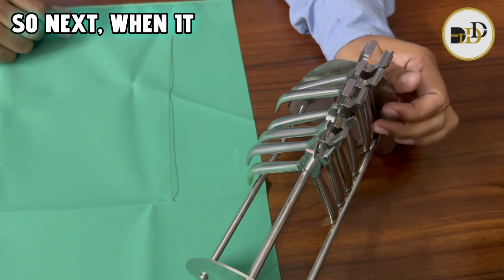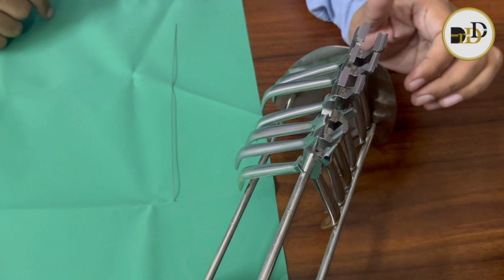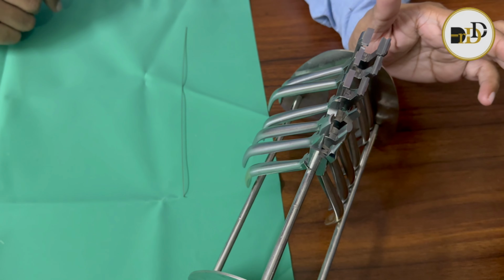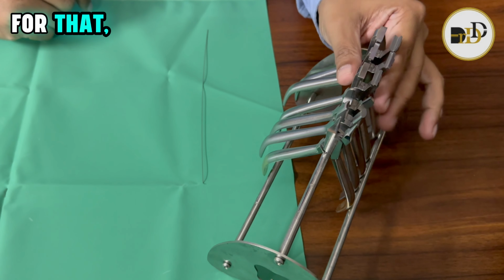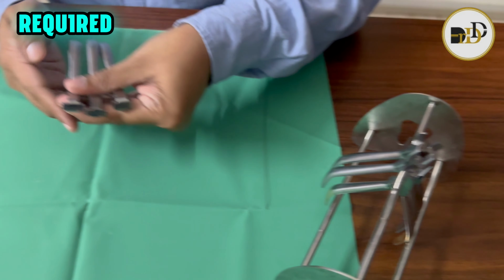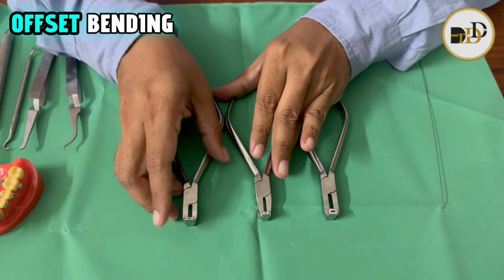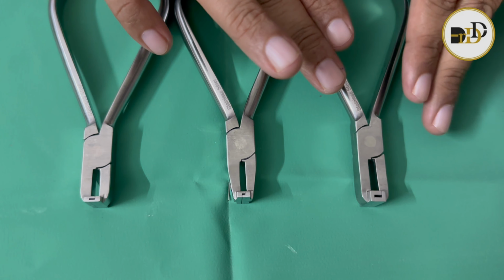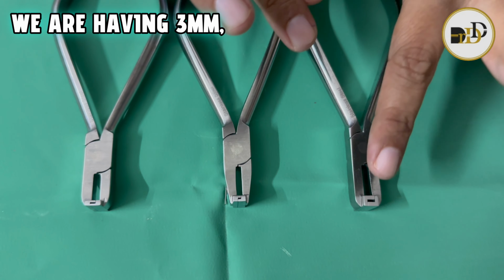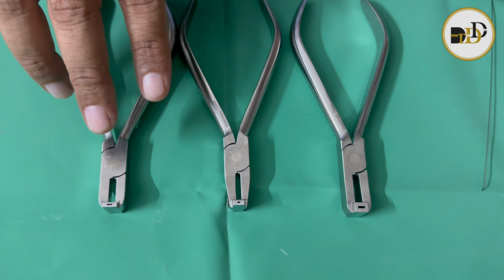So next, for the bending instruments, mainly for making lingual arch form modifications, these are the basic required instruments. Those are the lingual offset bending pliers. In the lingual offset bending plier, we have 3 mm, 2 mm and 1 mm instruments.